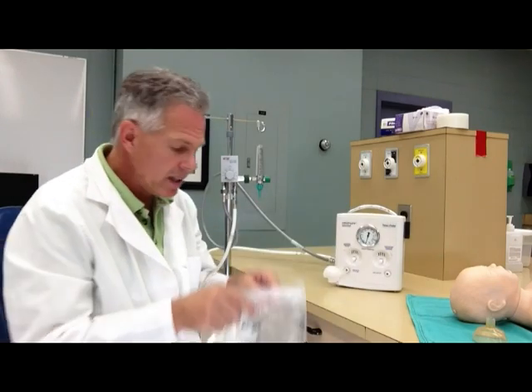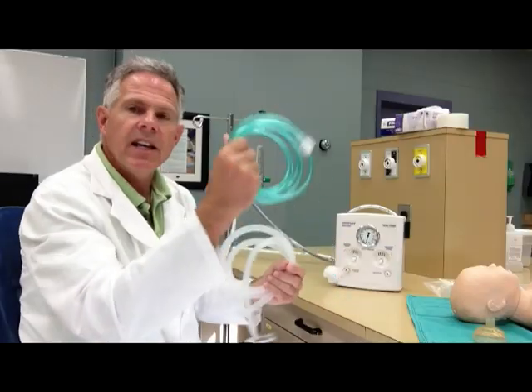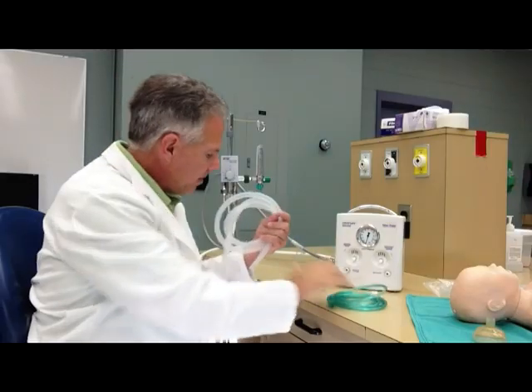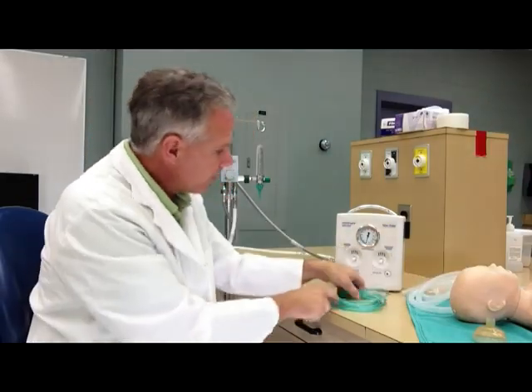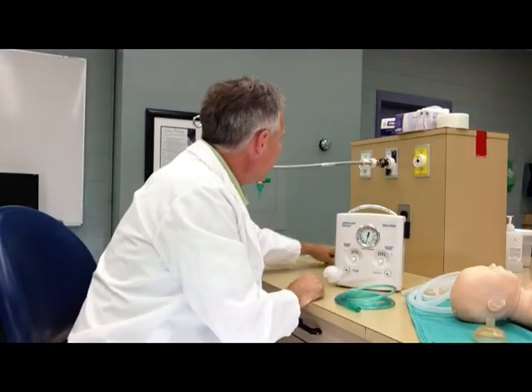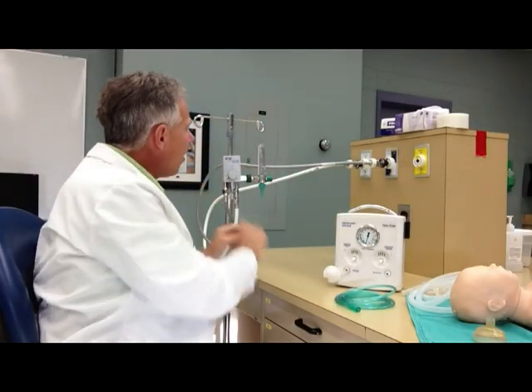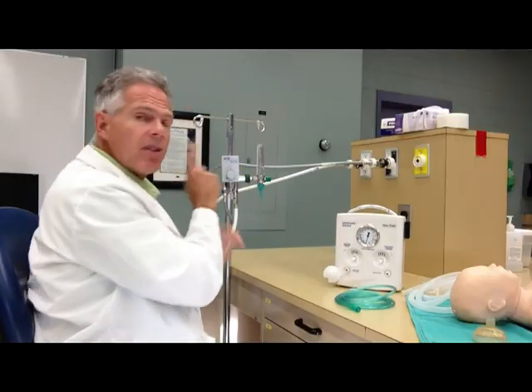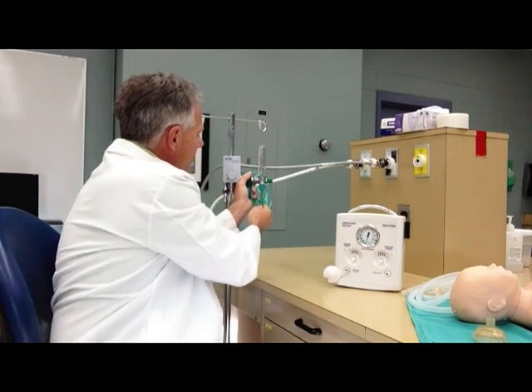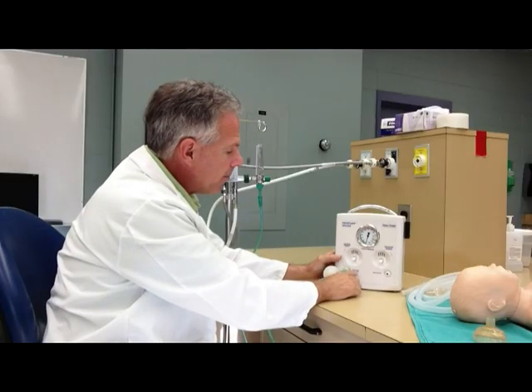The first thing we need to do is put on the circuit. The circuit is very straightforward — it comes in two parts. We have the inspiratory line, which will be from your gas source to the Neopuff, and then we have your patient circuit. I've got my blender hooked up to oxygen and air, so I've got my blended source of gas here. I'm going to start my resuscitation on 21%. We hook this up to our flow meter and to the gas inspiratory line right here.